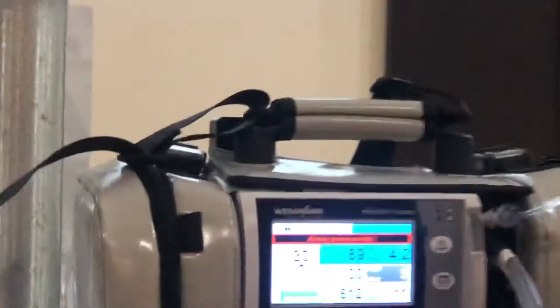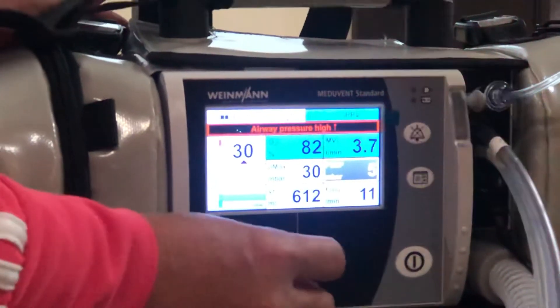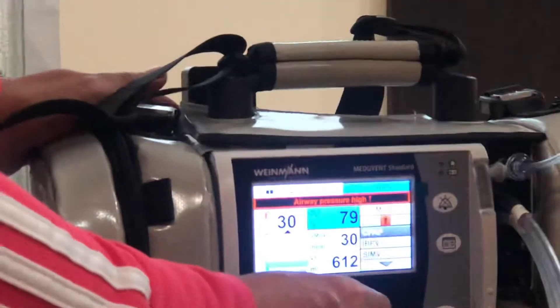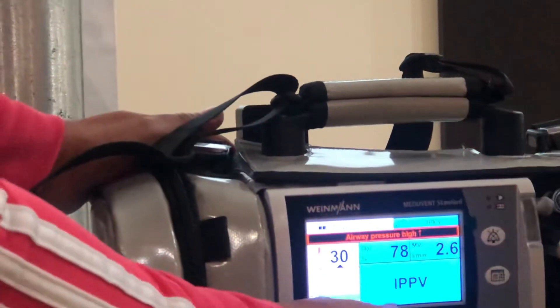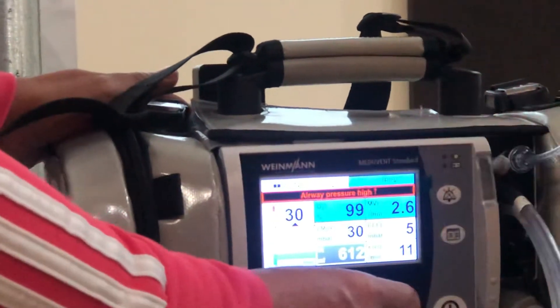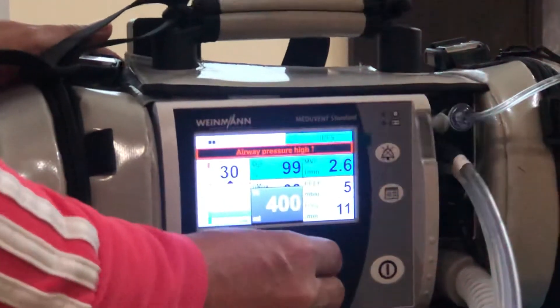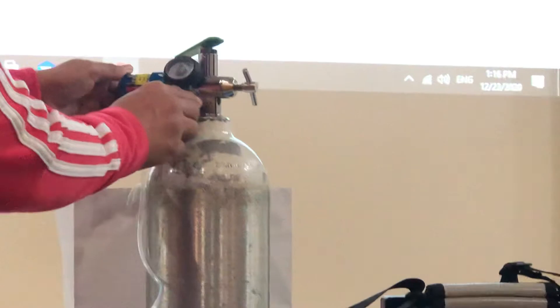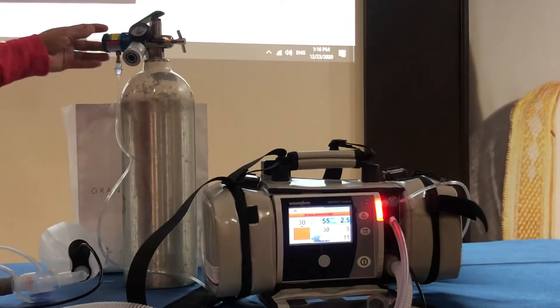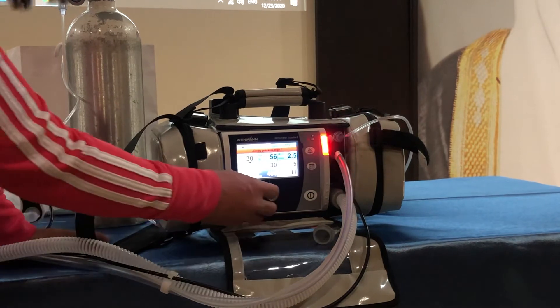What is the alarm? Airway pressure high. No — please solve this alarm. Tidal volume — no. You do not change the mode. If the airway pressure is high, you do not change the mode. There is too much pressure. We put 400 — let's see if it is suitable. Oxygen flow higher than necessary, so reduce the oxygen flow. We still have an alarm — airway pressure high. So what do we need to do? Lower the tidal volume.